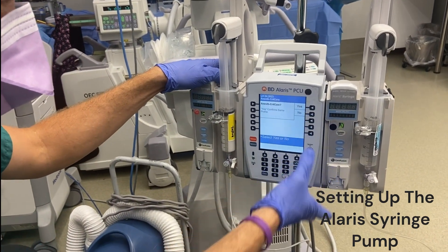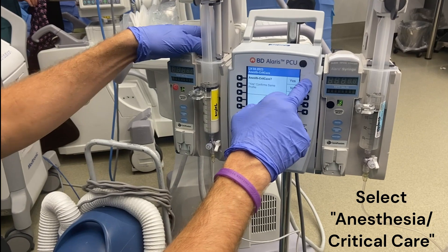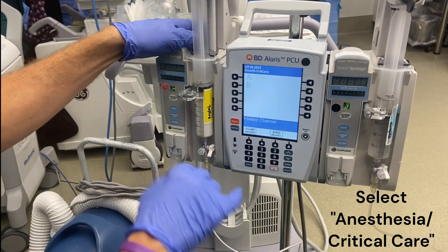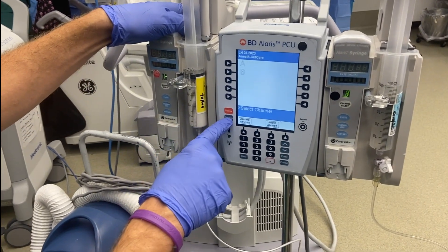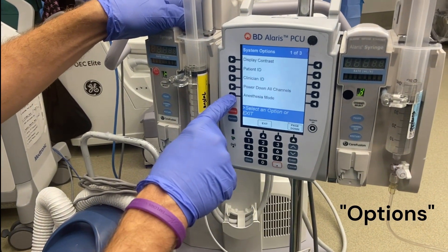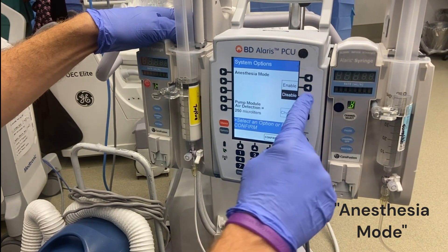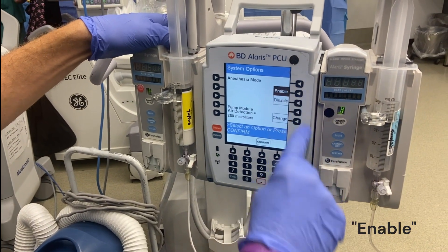New patient. Anesthesia critical care. First thing that we're going to do is go down to options, anesthesia mode. I'm going to enable that.